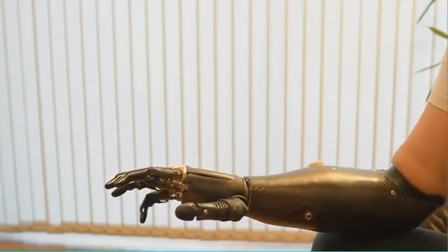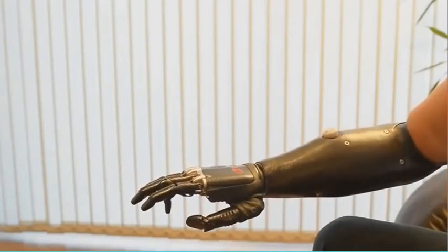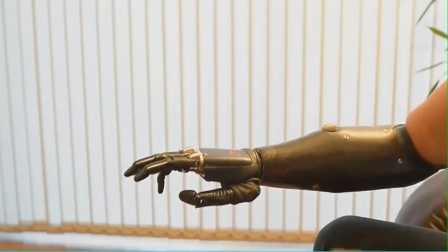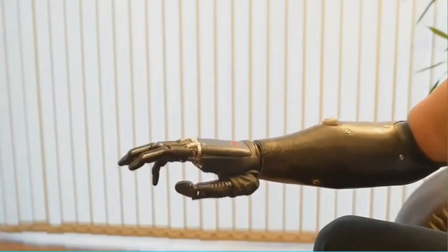And then we have a mouse grip. This will hold a mouse for single click, double click. And they're developing this now so that you'll be able to soon get drag and drop.